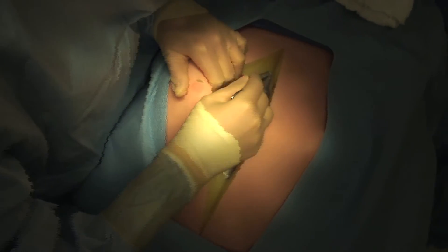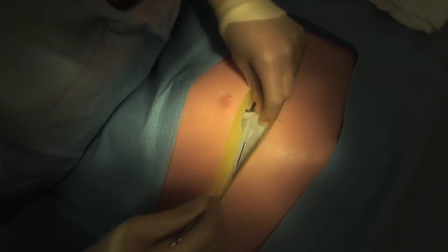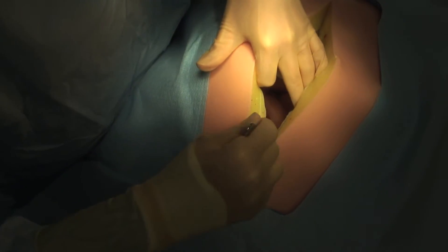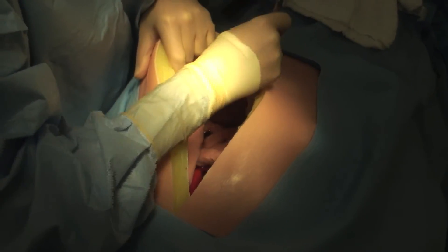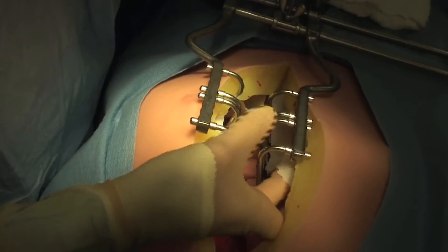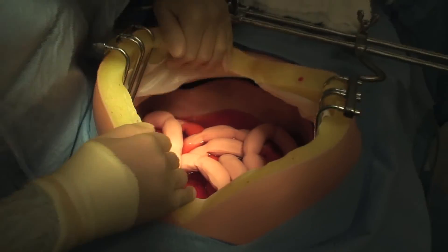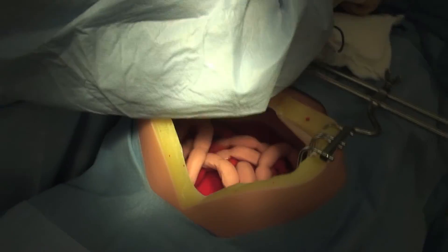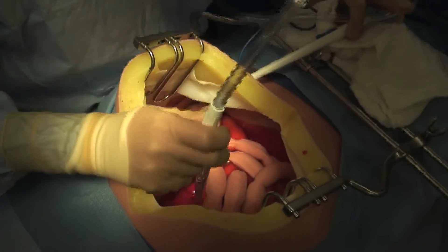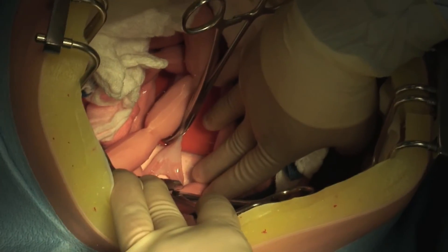Simulab's attention to learning details combined with helpful staff and easy online ordering platforms will enable any medical simulation training program to maximize learning outcomes with minimal budgets. You can watch the entire Surgical OR event by watching the LSU Simulab video link provided on the screen below.